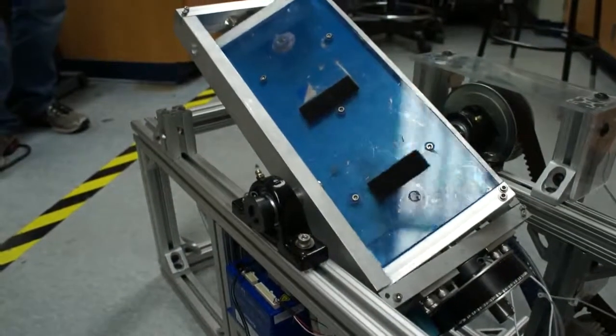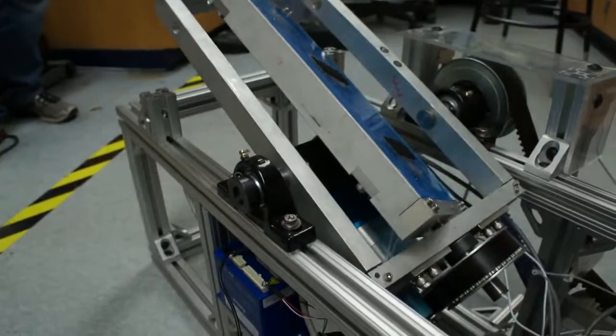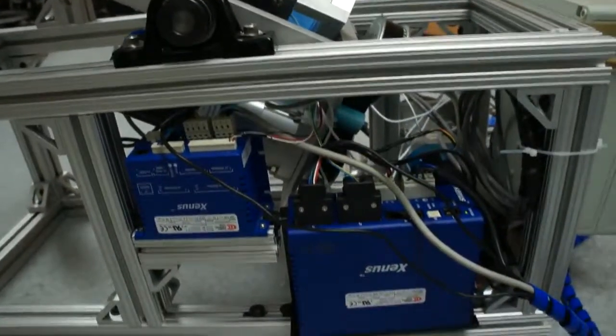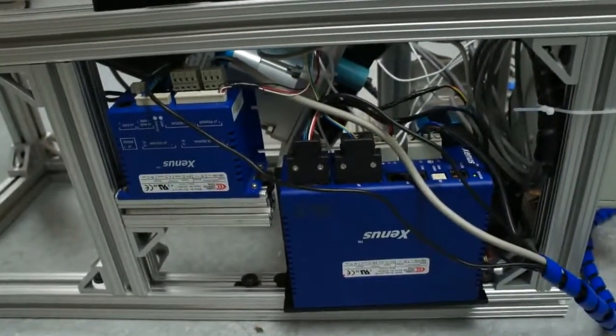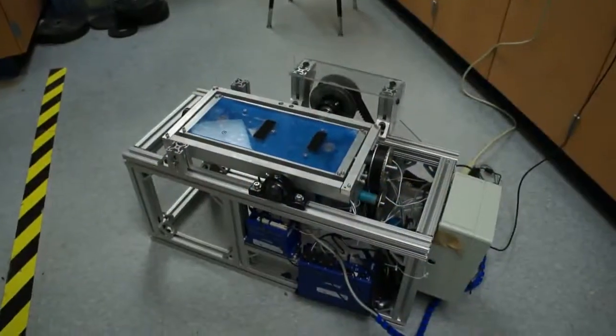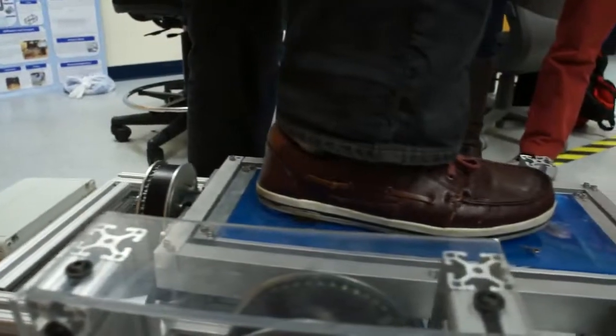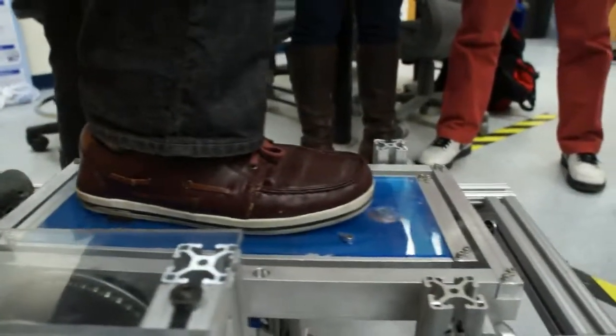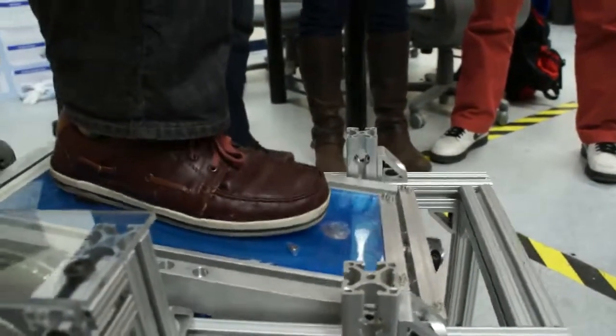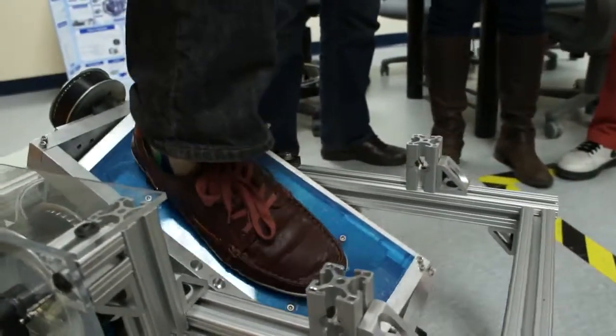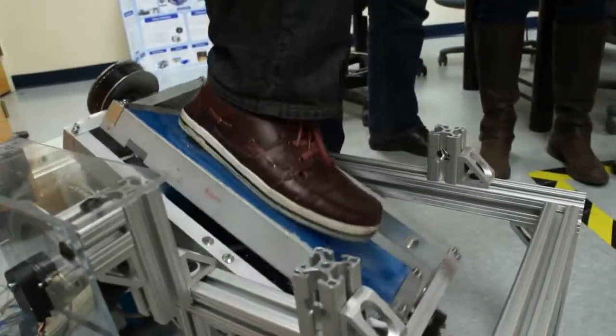We have a lot of future development obviously going into this footplate. Some of the more recent things that we need to accomplish include adding a foot binding to the footplate, so obviously the user's foot can't slide throughout the device. We also need to add a support railing and side supports. And the end goal is to have this interface with virtual reality.